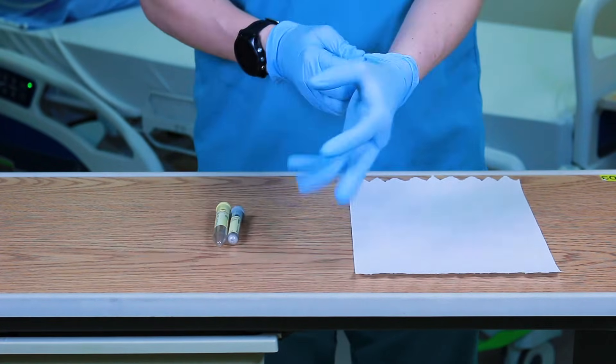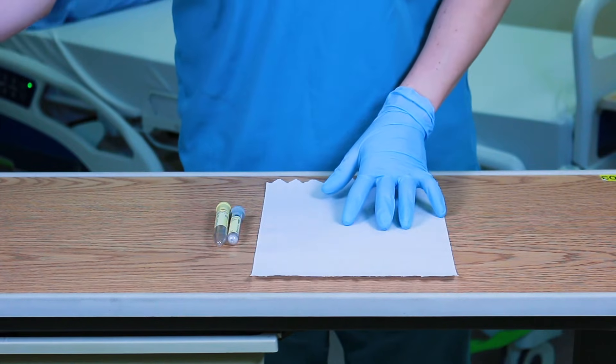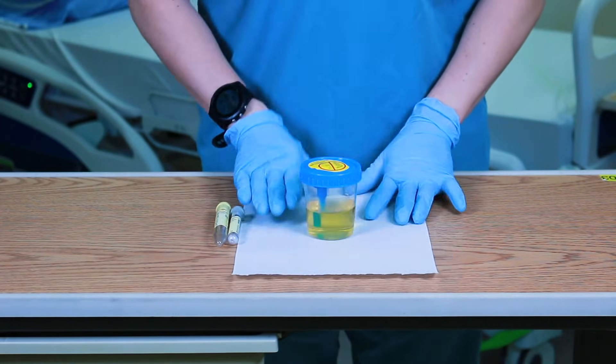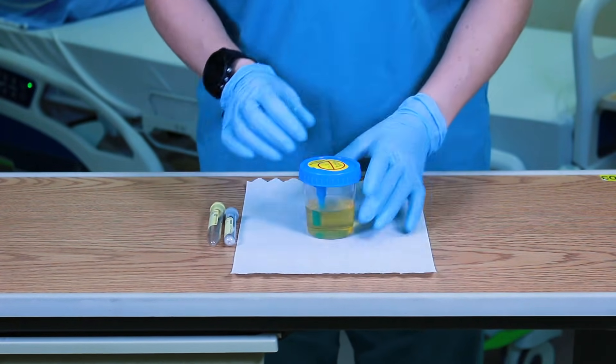Next, apply clean gloves. Receive the urine sample as soon as possible from the patient and place upright on a clean paper towel.